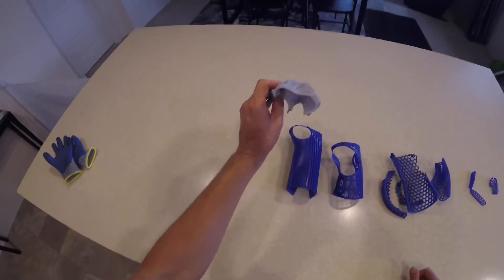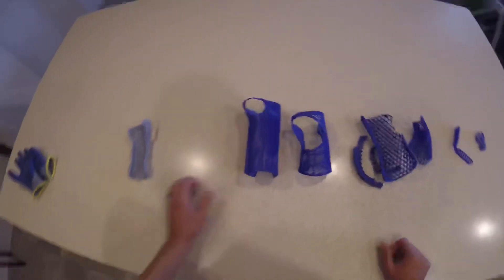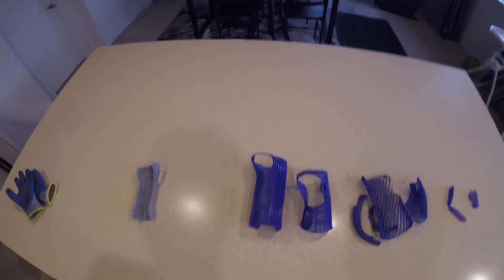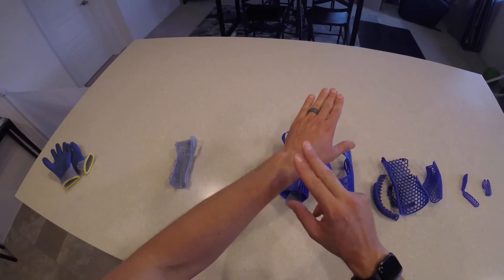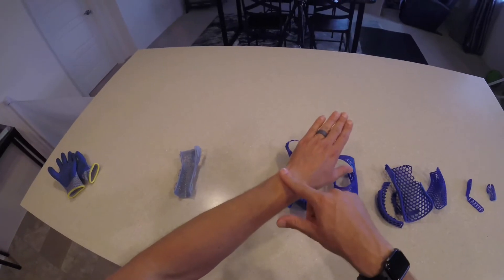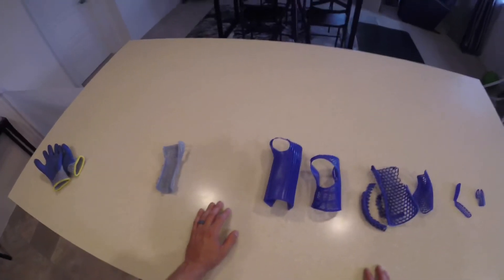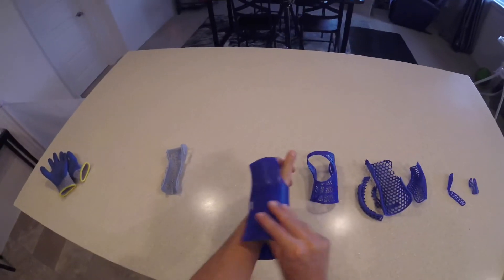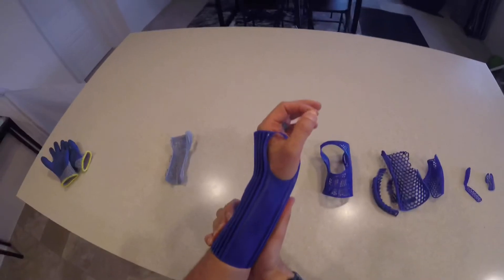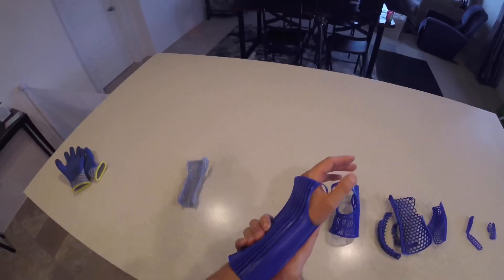What I love about these PRUSA splints is that because they're printed flat, they're extremely easy for any printer to print. The custom-shaped ones are very difficult on FDM to print without a lot of stringing and the need for post-processing. The most common injuries you're going to see of the upper extremity are distal radius fractures - this area right here, sometimes the ulna as well. Fractures right around this area are extremely common, accounting for 20% of ER visits, and they're very common in conflict zones where people are running and tripping. I made this on the stove at about 15 degrees of extension, so the knuckles are higher than the forearm - that's extremely important.